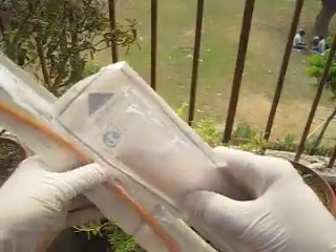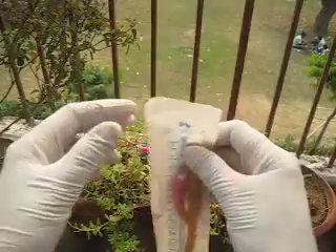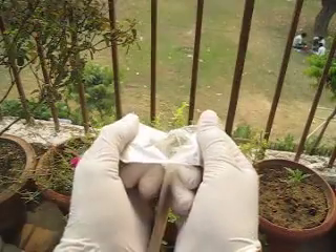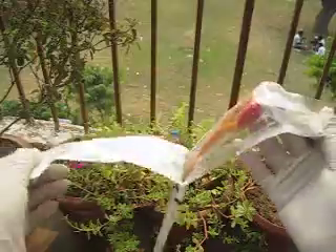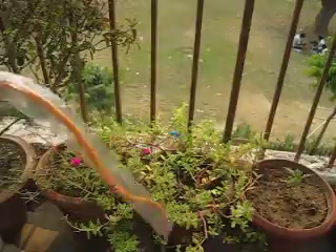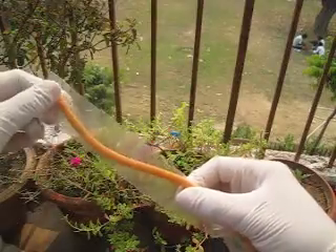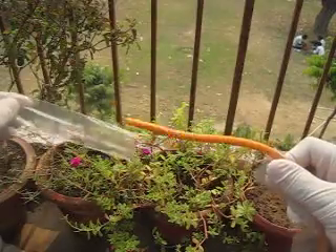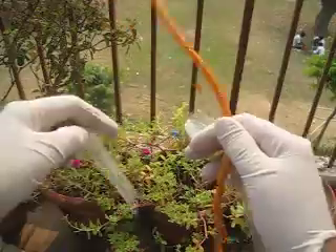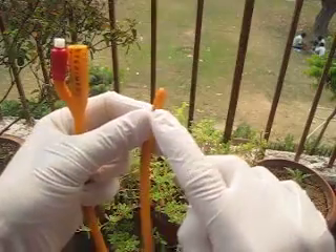The tip lies there, and I'm just showing how to fix that. If your senior asks for the catheter, you have to give it this way so that the unnecessary part covers outside. There is marking on it, so it is removed this way, and after that you can insert it.